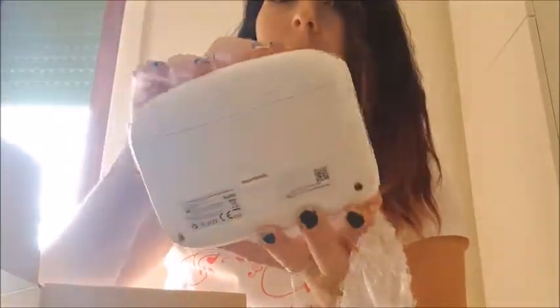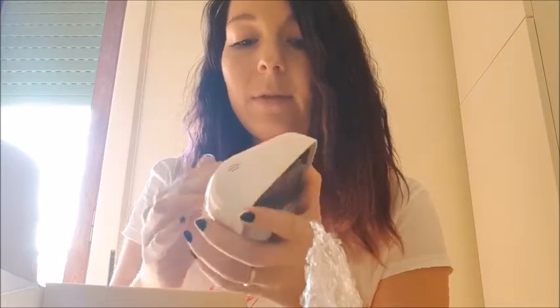The monitor itself looks nice. It has a start and stop button, a settings button, and what I guess is a memory button. No batteries are already in it. It doesn't come with a case, but that's fine. It does come with a cuff for your arm.